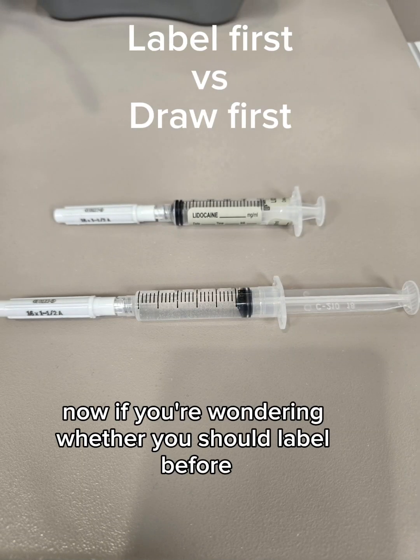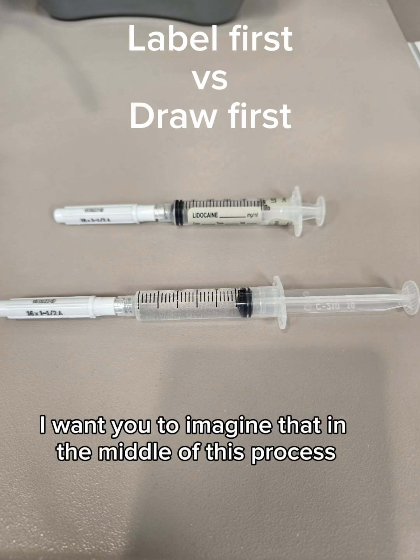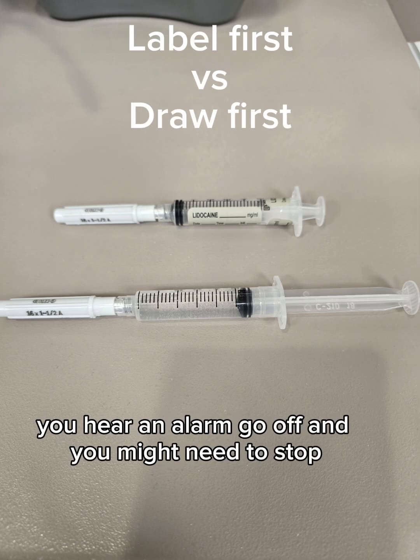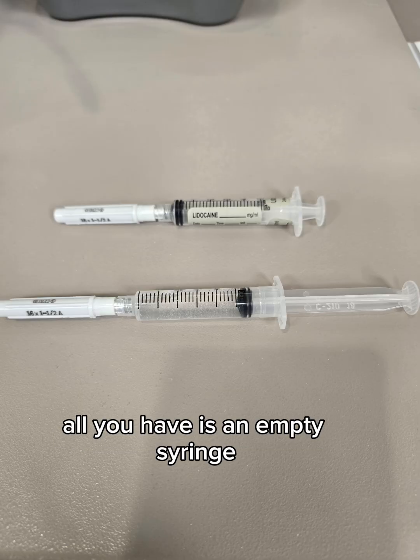Now, if you're wondering whether you should label before or after drawing up your syringe, I want you to imagine that in the middle of this process, you hear an alarm go off, and you might need to stop. If your first step is labeling, all you have is an empty syringe, which is benign.